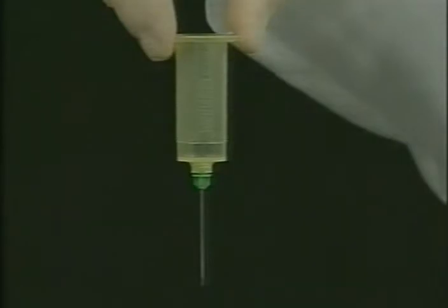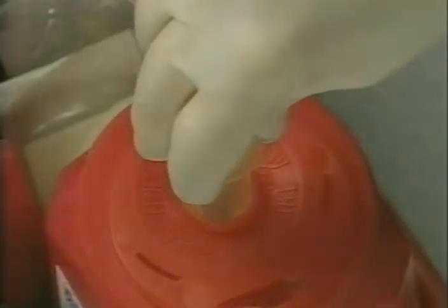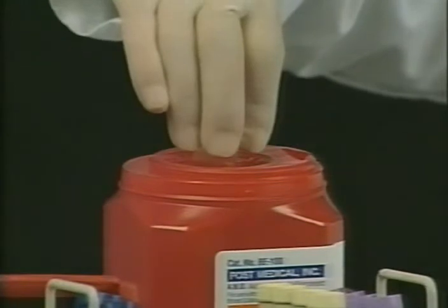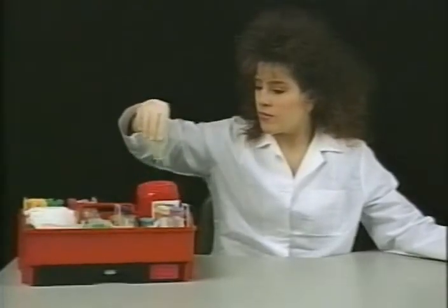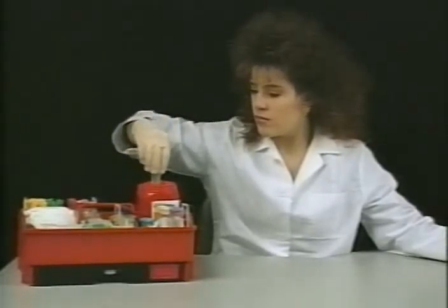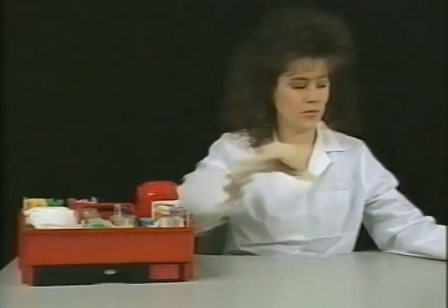With the fingertips, grasp the holder by the flanges. Slightly twist to the left, then slowly push to the end of the stroke. Three clicks will be heard. The third click notifies the user the full downstroke cycle has been completed and the used blood collection needle has fallen safely into the container. This three-click safety feature assures the user of a completed downstroke cycle.